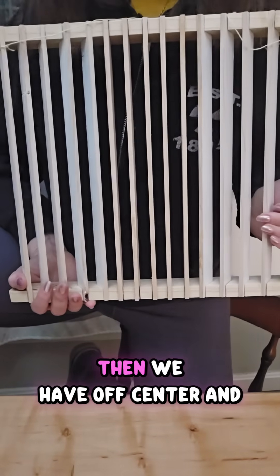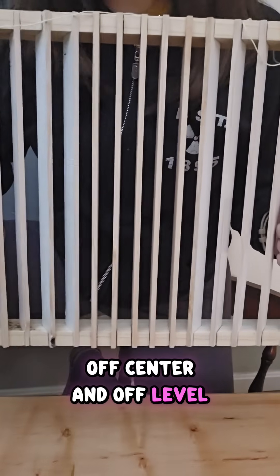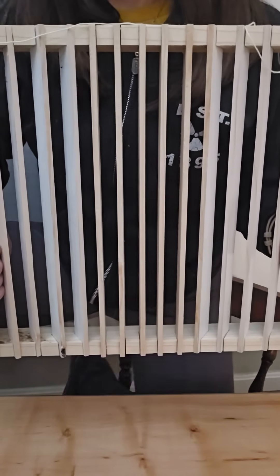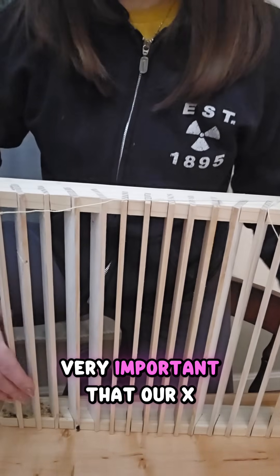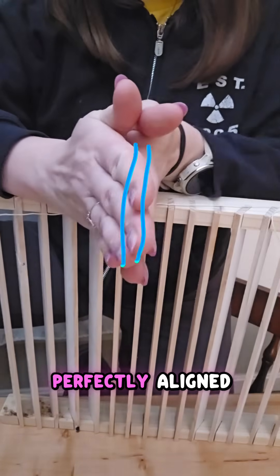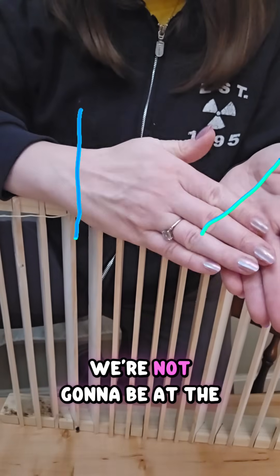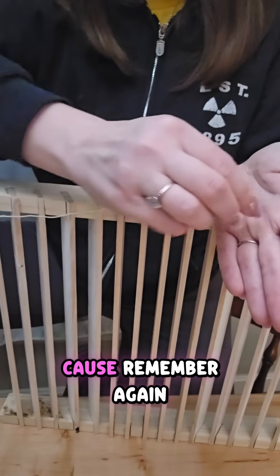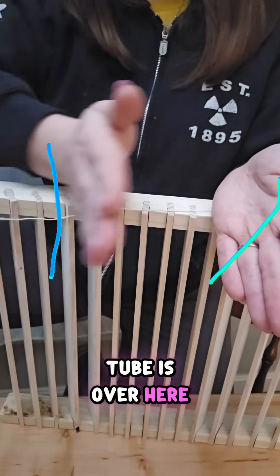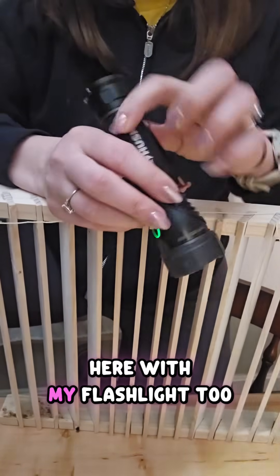Then we have off-center and off-level. These grid errors tend to happen when we're on portables, because with portables it is very important that our x-ray tube and our image receptor are perfectly aligned. If they're not — like if the image receptor is tilted — we're not going to be at the convergence point. Remember, the grid is going to have a convergence point going out, and if my x-ray tube is off to the side, I'm not at the convergence point. I can show you here with my flashlight too.